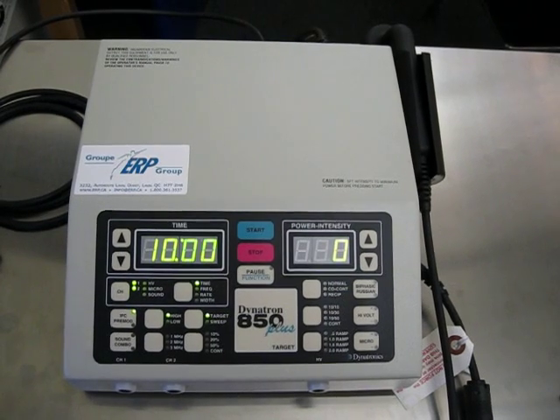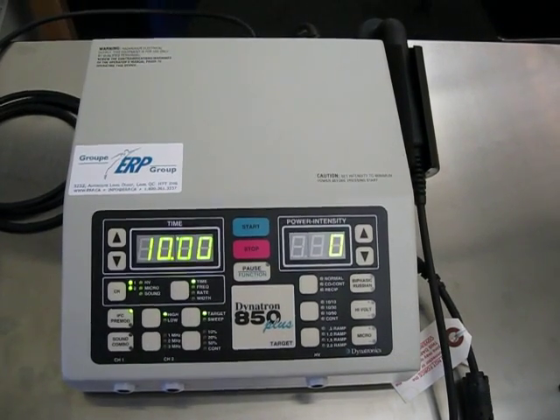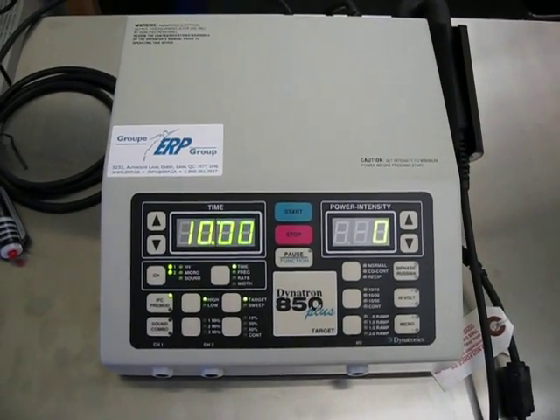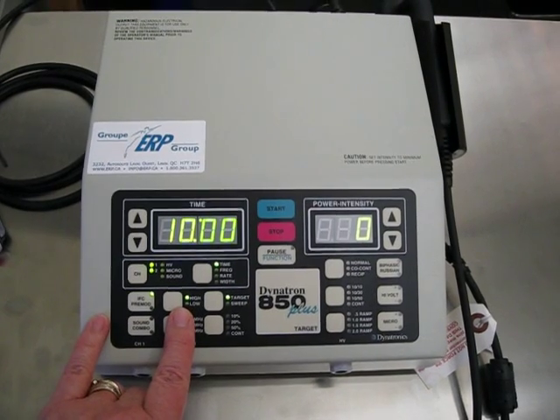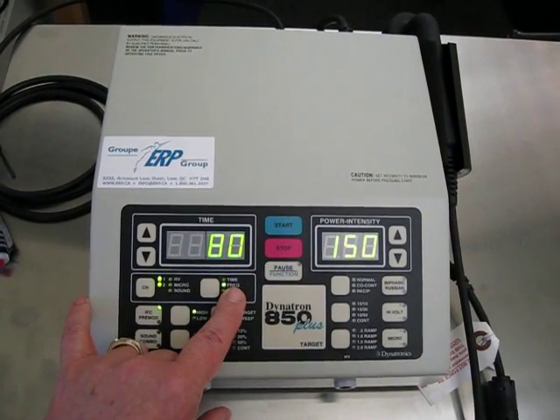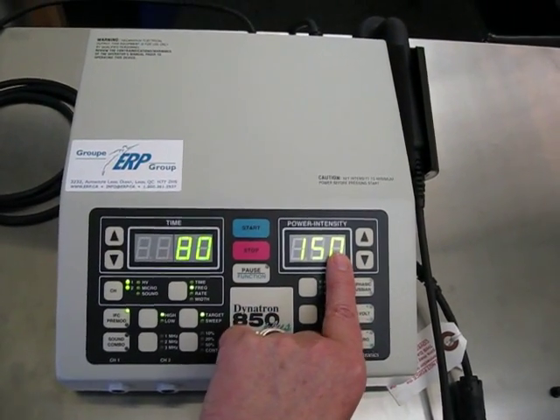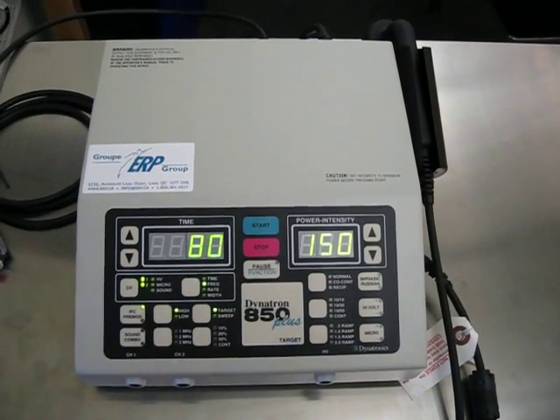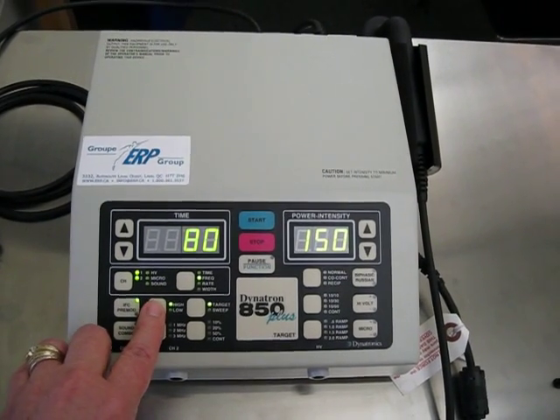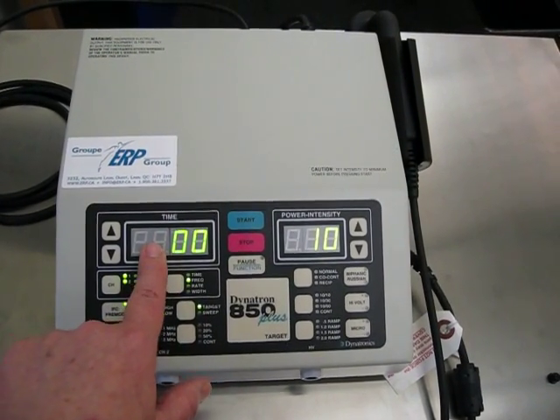We're just going to look at what the machine offers you in regards to frequency. This machine allows presets, so there will be certain frequencies already on the machine before you turn it on. To identify what those are, if you touch this toggle switch so you have it by frequency, you will see it says 80 to 150 — that's pulses per second or hertz. If you look down here, you'll see that it says high, so that's the high level preset. They also have a low level preset, which is 0 to 10.